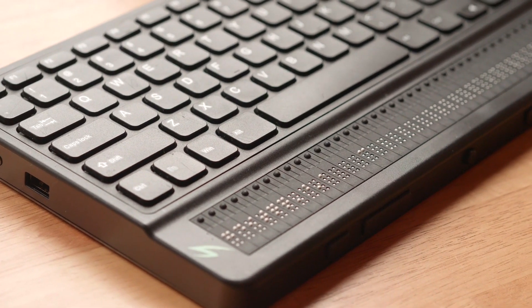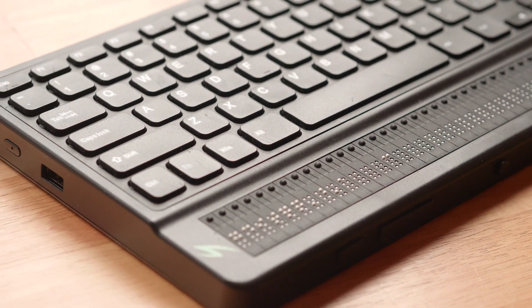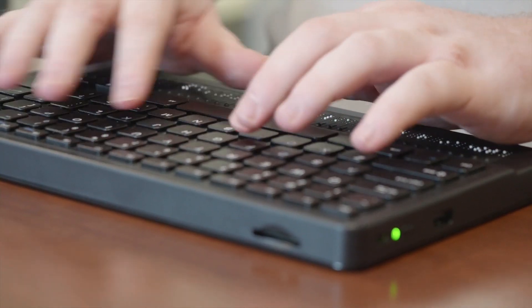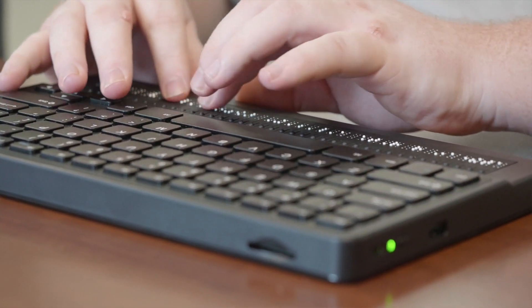When a student goes to learn touch typing and QWERTY keyboard entry, one of the things that they do is they'll move away from whatever device they're using. They'll go over to the computer and they'll leave the Braille display or whatever they were using in their backpack — it won't come to the keyboard with them. And so when you're using the computer, something like this is super valuable because when you go to the QWERTY keyboard, you no longer are leaving the Braille aside.